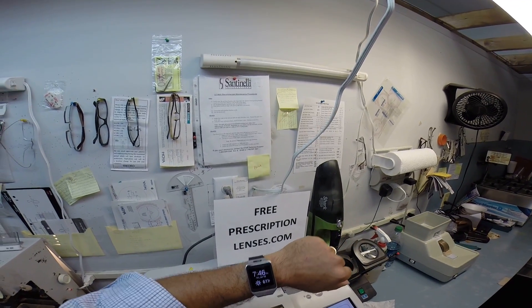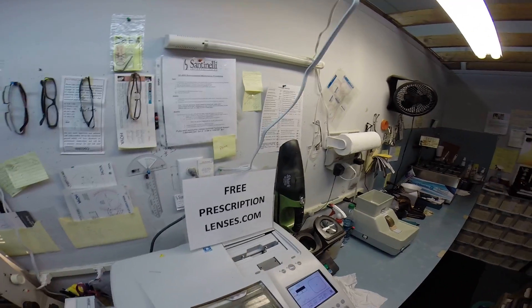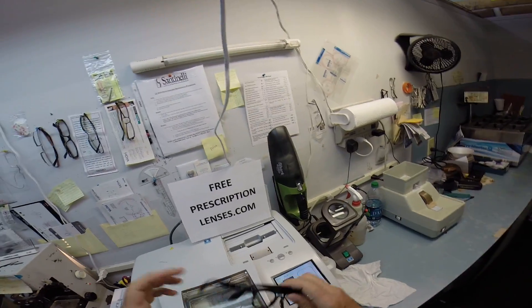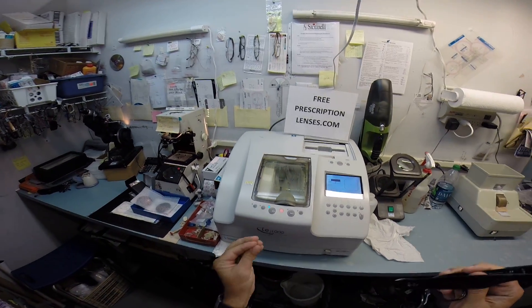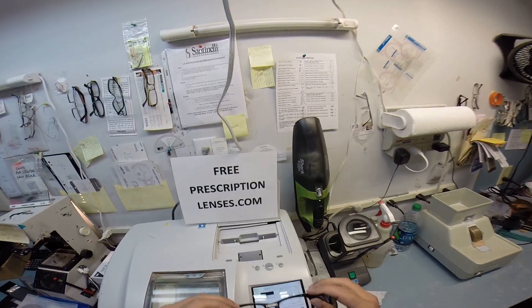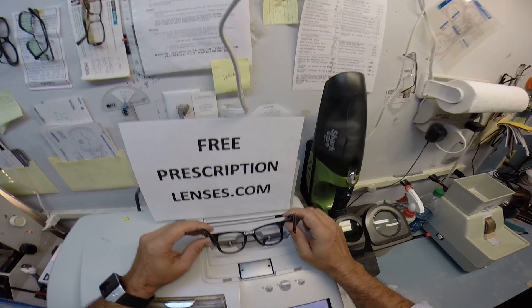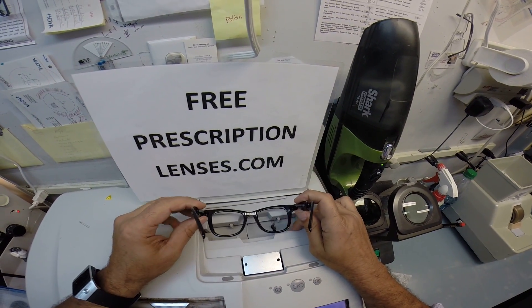It's now 7:46 on Friday, July 18th. Give me 15 minutes and by 8 o'clock, we're going to have your prescription in this frame. So I'm going to take your Italian frame and put it into my Italian Santinelli. This is the LE1000 Patternless Edger. So I'm going to slow it down for you this time.